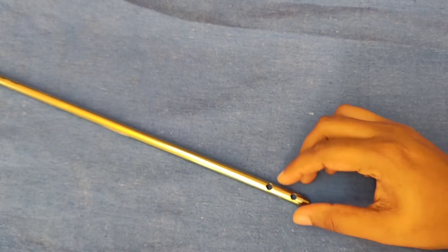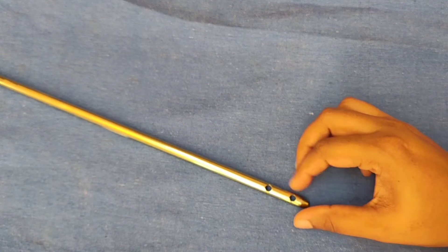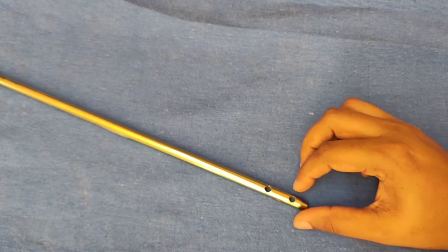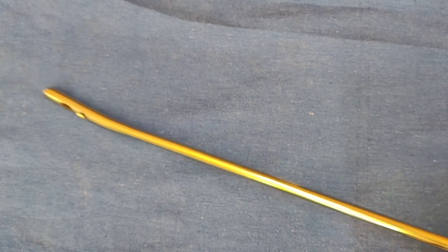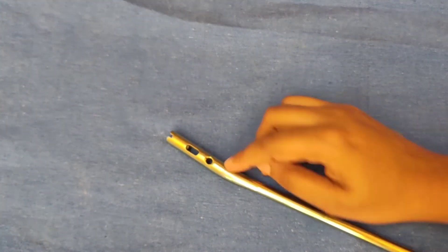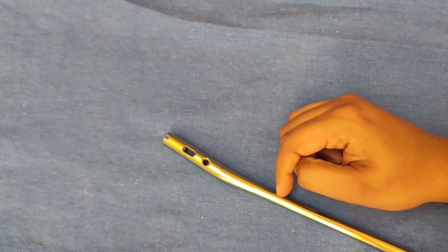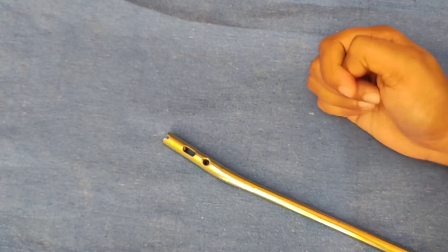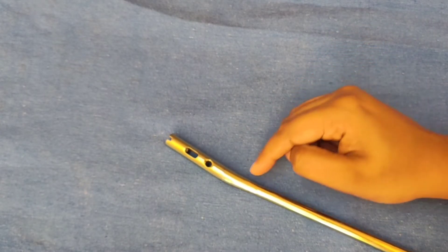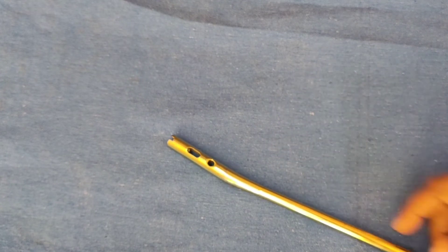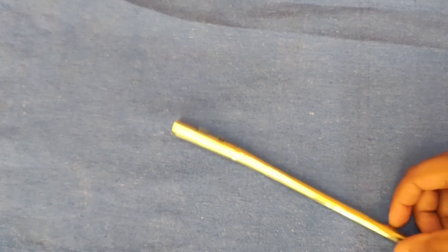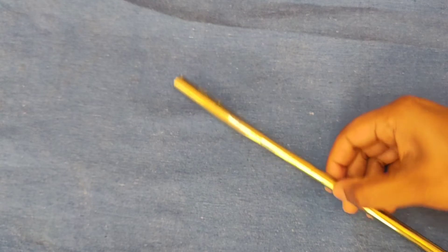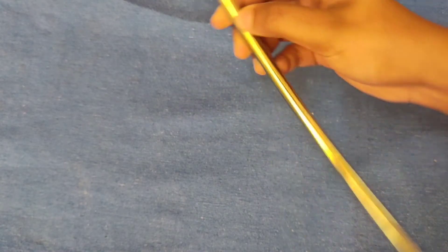There is a bend 5 cm away from the proximal end which is known as Herzog's bend which is about 10 degrees, and the range of diameter is from 7 to 12 mm. The insertion is about 1.5 cm distal to knee joint line in the line of medial half of tibial tuberosity.